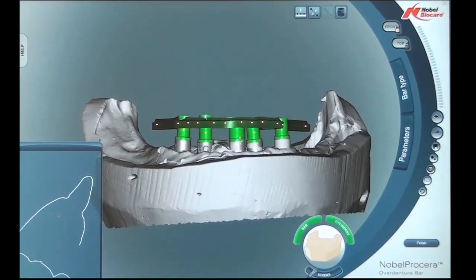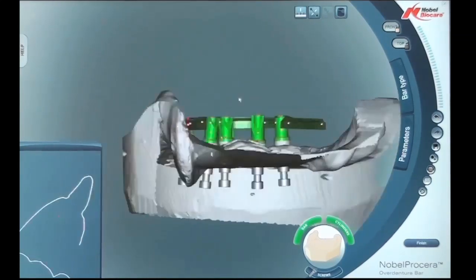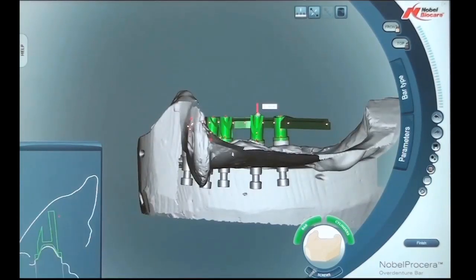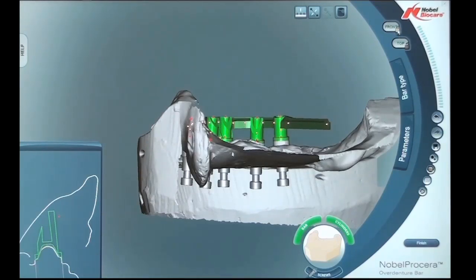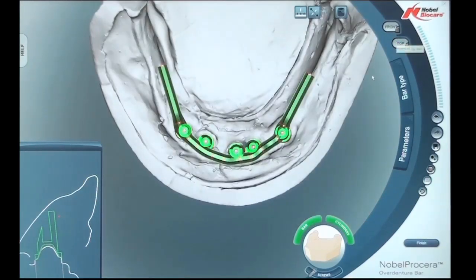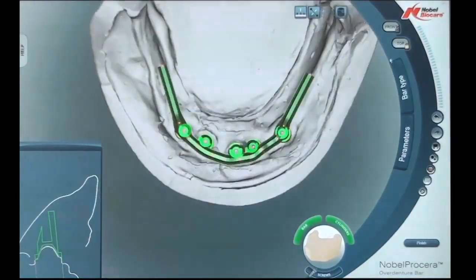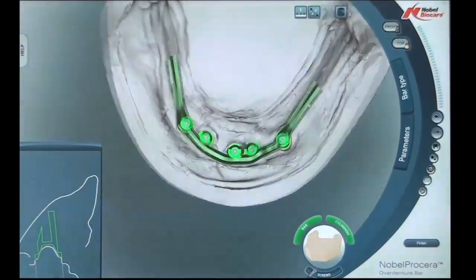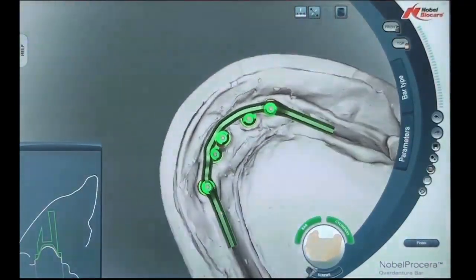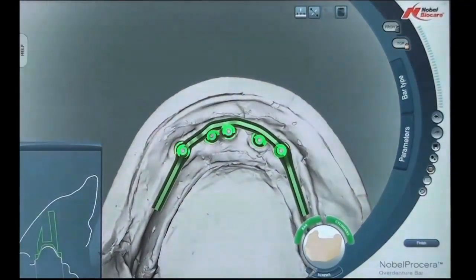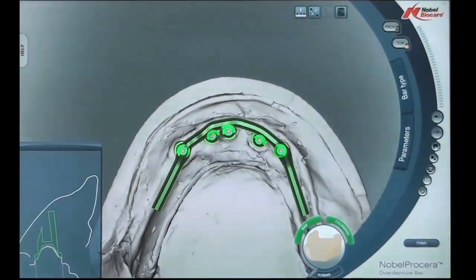Here I'm doing some final checking — that cylinder appears to be a little bit too tall, so I'm going to lower it down a little bit. I lowered the cylinder to keep it at the same height as the bar. Going to a top view, looking at the bars over the ridge and just reviewing the overall design — making sure I'm happy with everything, rotating it around, looking at all different aspects to make sure I'm happy with the bar design, strength, contacts, and the bevels rotated to the ideal position to allow for maximum tongue space.